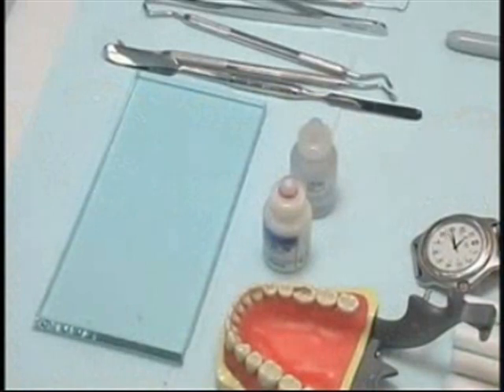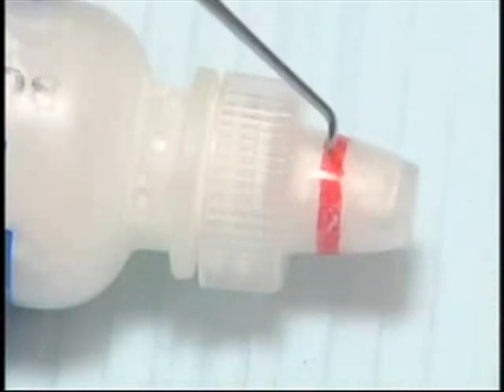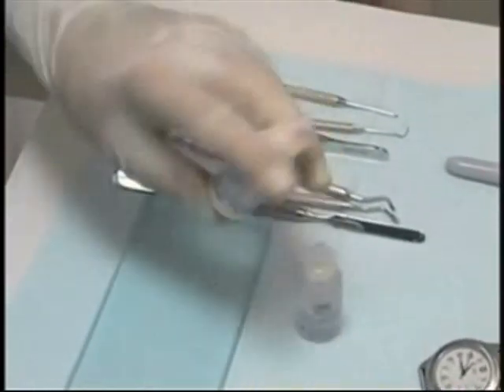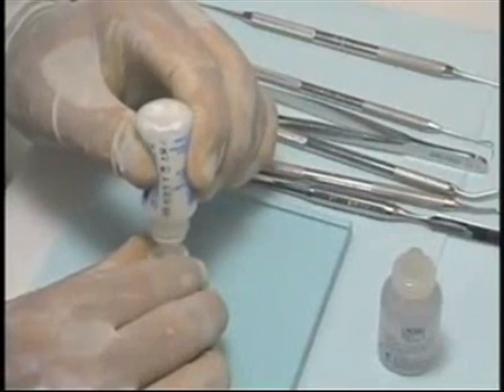Find the glass slab in section C of the second drawer. Use the powder bottle cap as a measuring scoop. Pack two thirds of the dome-shaped cap with powder and dispense it on the lower right corner if you are a right-handed operator.